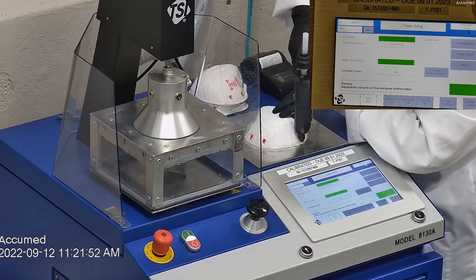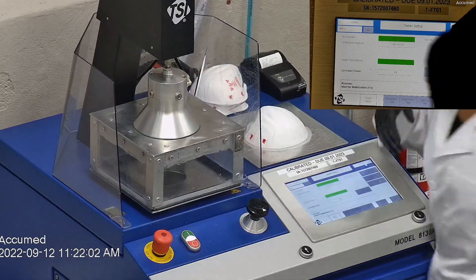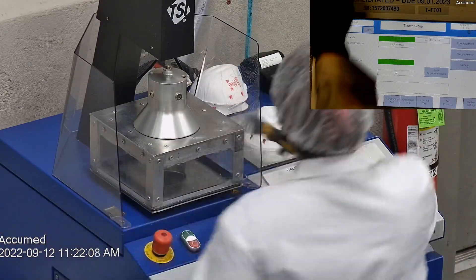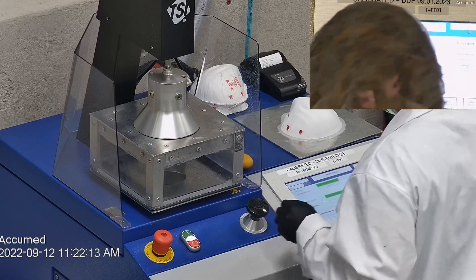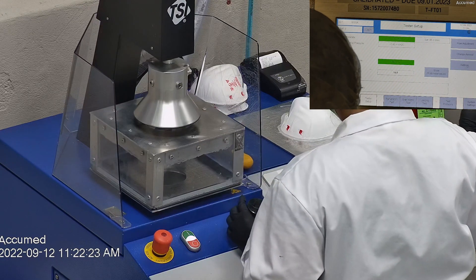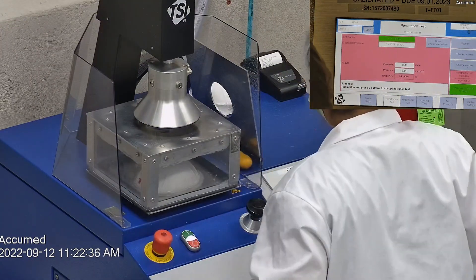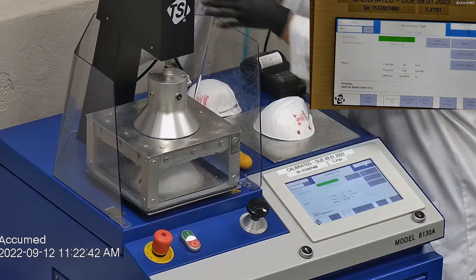The testing plate is then attached to the frame and the box is placed under the TSI filter holder for testing. The results are displayed on the TSI monitor. F stands for airflow rate, which we test at 85 liters per minute. R is for resistance, also referred to as pressure drop — this correlates with breathability, so the lower the number the more comfortable and breathable the mask is. E stands for filtration efficiency percentage.